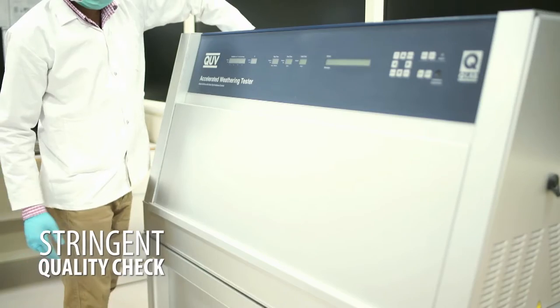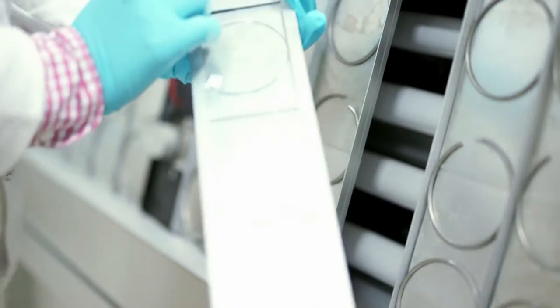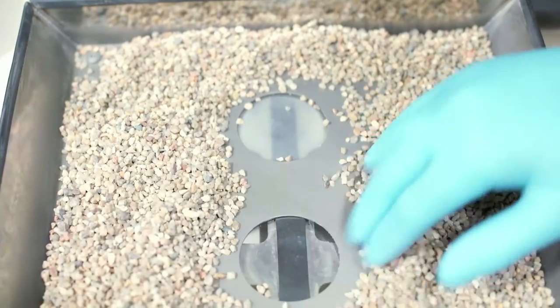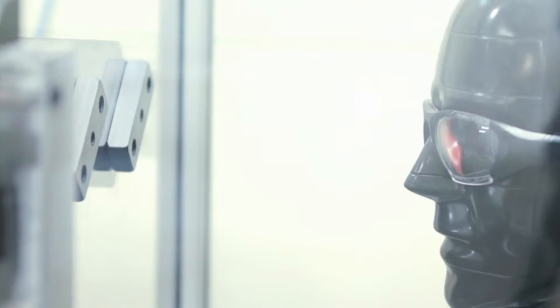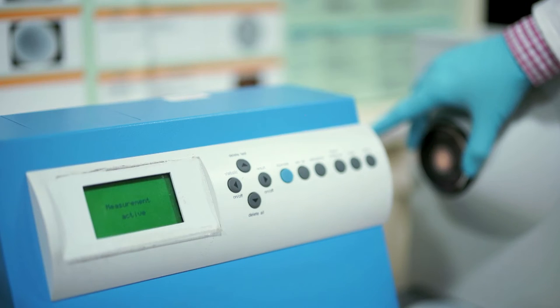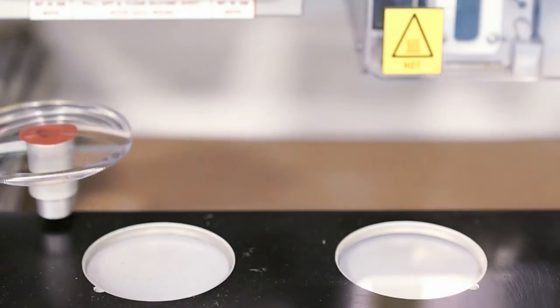To ensure that it offers the best products to meet the most stringent international standards. For ensuring good quality of coatings, the lenses undergo stringent quality tests such as adhesion test, coating thickness, abrasion test, and weathering tests, tests for light transmission, etc.